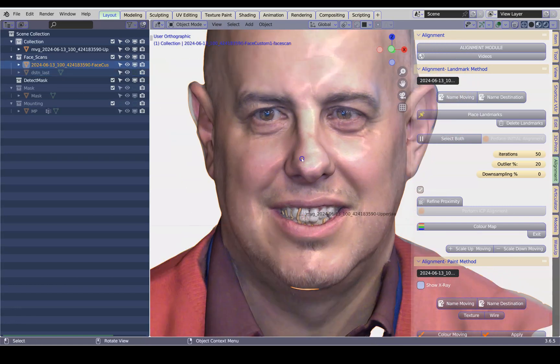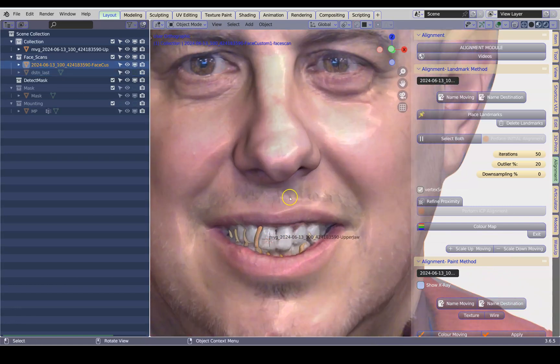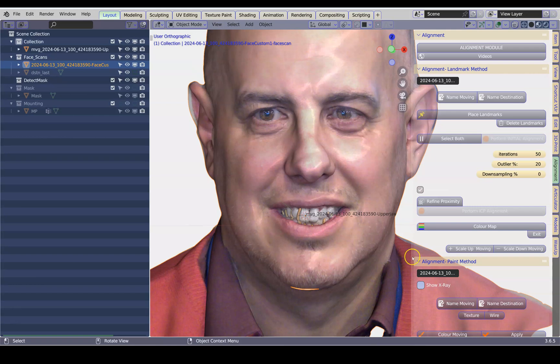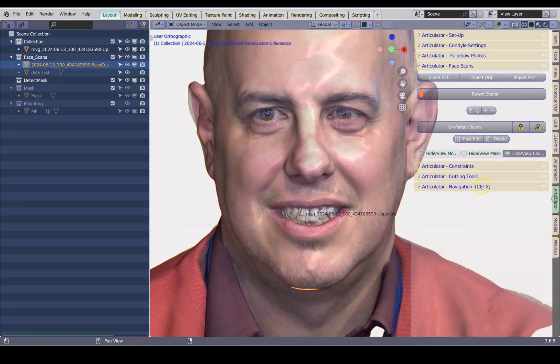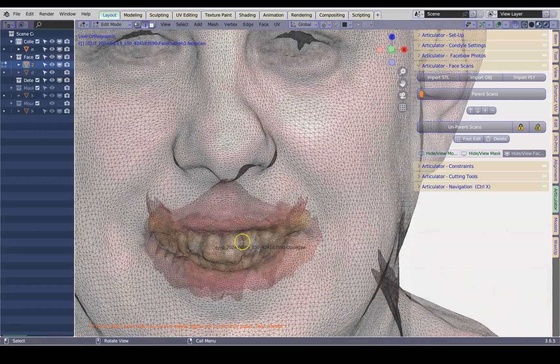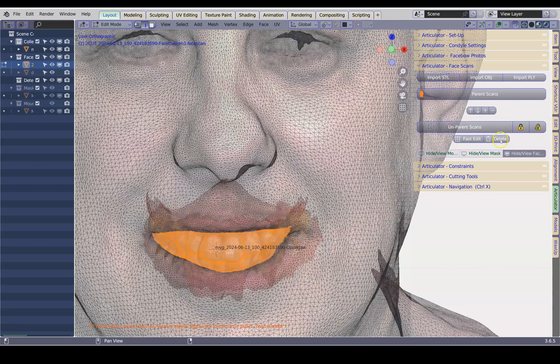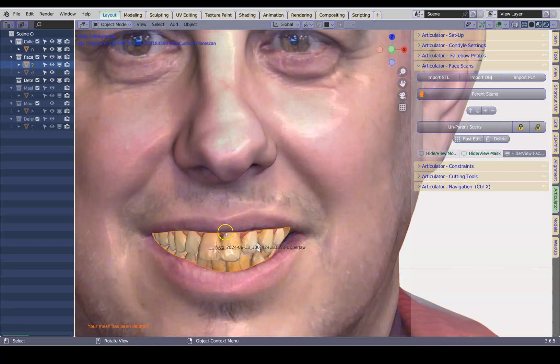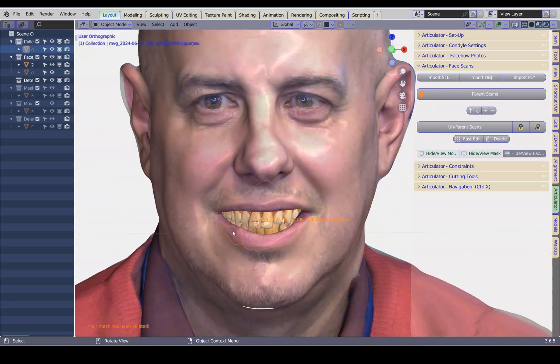You may want to know how we're going to cut these out — and that's very easy. Just select it, and in the articulator module this new menu, just click on fast edit. This puts us into transparent mode, and we're going to outline the lips over here like this, and then just click on delete — and that's going to delete it. It's as simple as that.